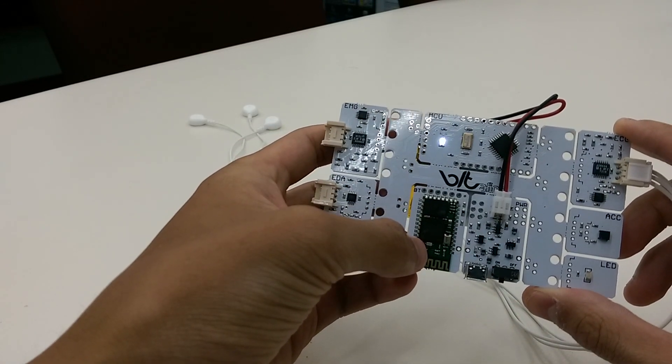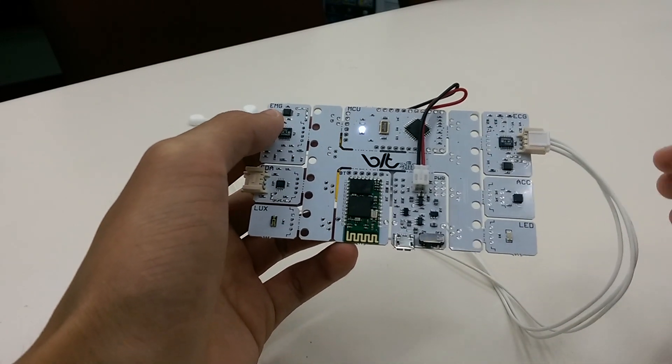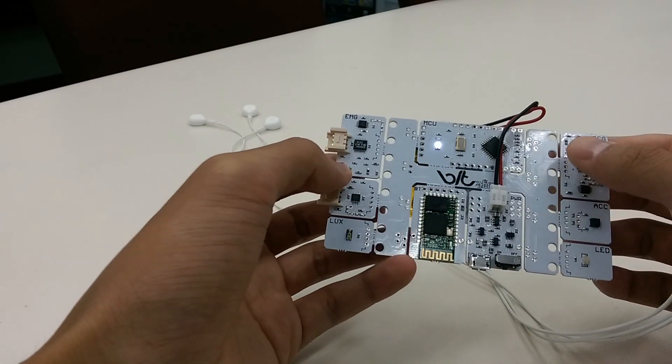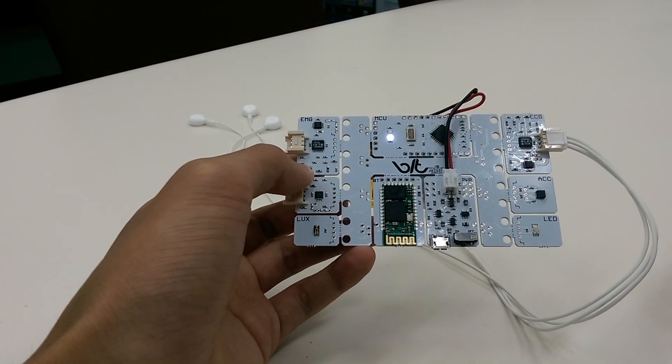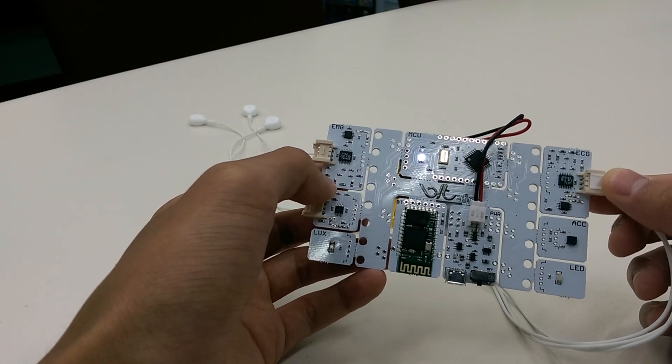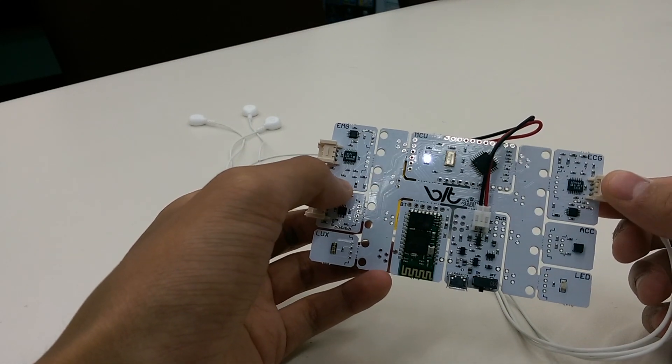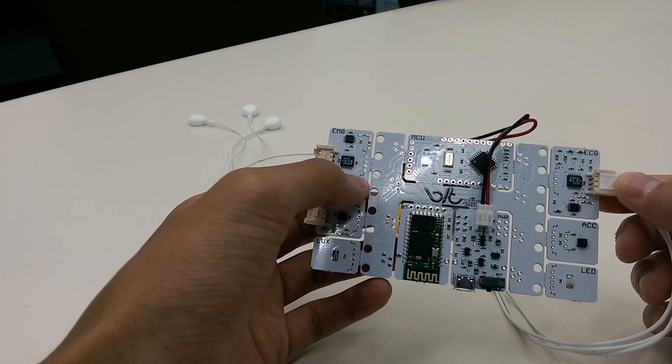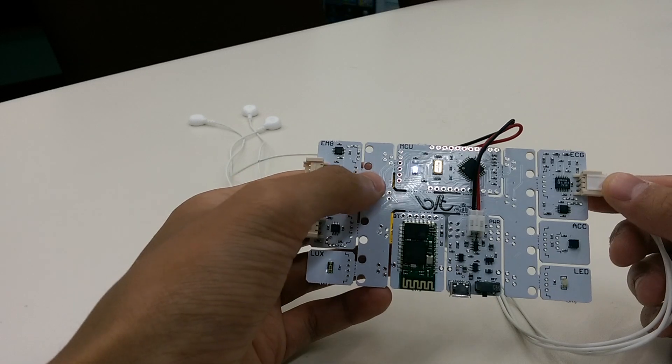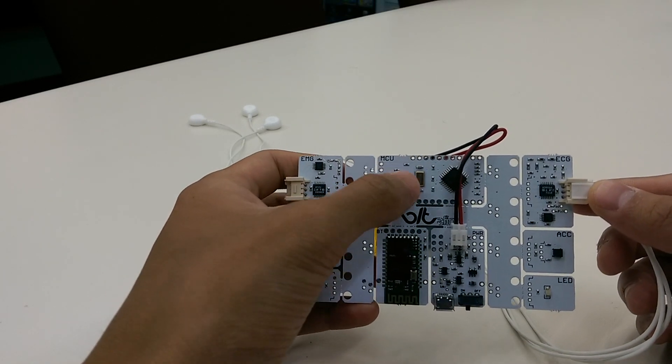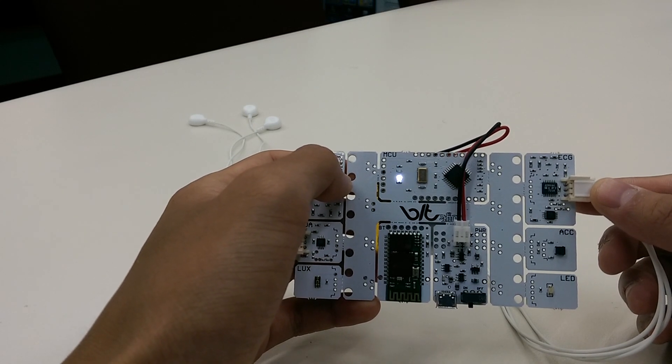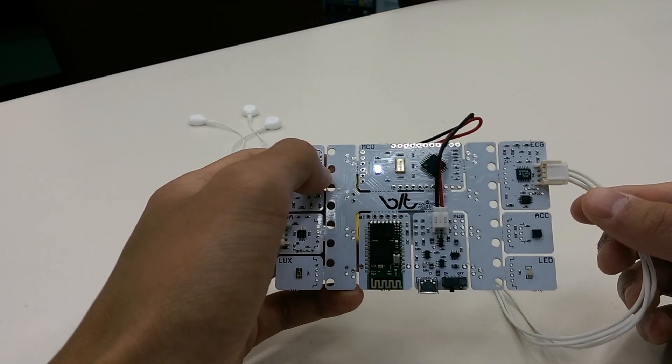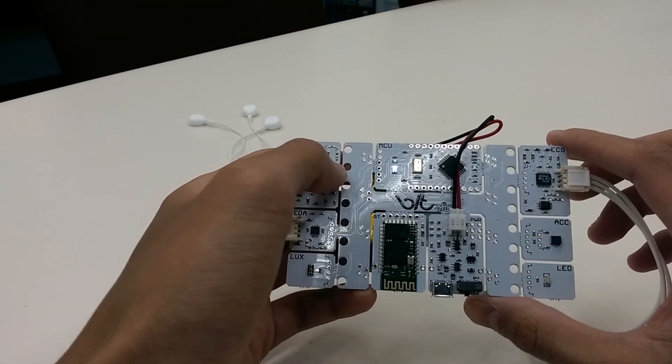Right here we have the Bluetooth transmitter. Data as collected through these channels or sensors will be output through the Bluetooth device to a computer within a software such as their own OpenSignals or an API like MATLAB. Finally, in the center we have the microprocessor. This just receives the data and then outputs it as readable information for us in later use.